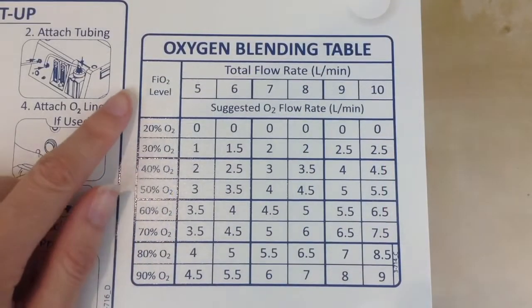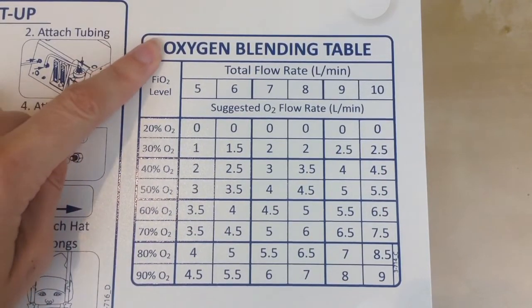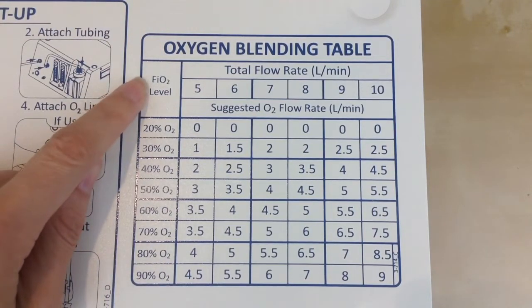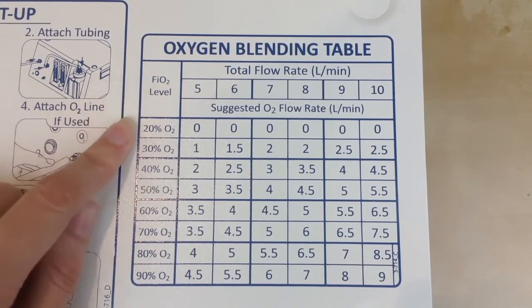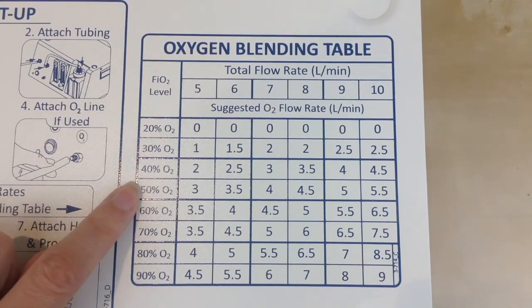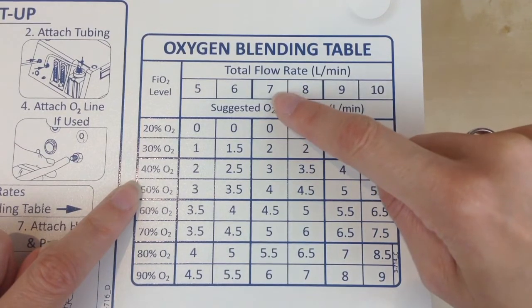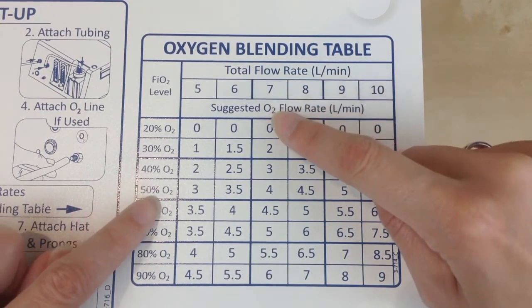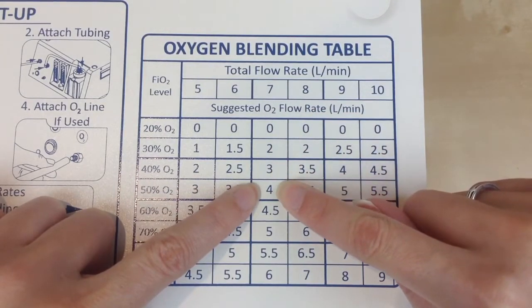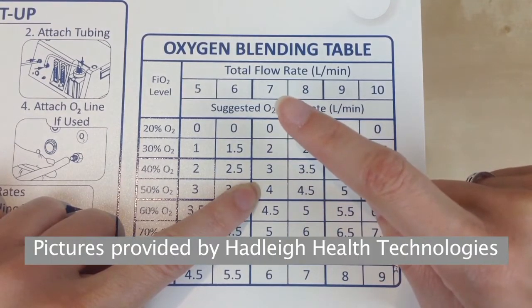If you would like to set other oxygen flow and total flow rates, you can go to the oxygen blending table found on top of the unit. First, you will determine the fraction of inspired oxygen level that you want to deliver to the patient. For example, if we choose 50% FiO2, you then choose your total flow rate — we will choose seven. Where these two values meet is your setting for your oxygen flow. So you will set the concentrator or tank to four liters per minute, and your total flow rate to seven liters per minute.